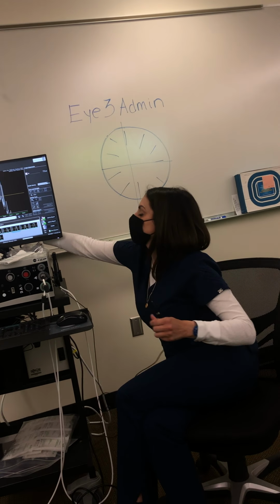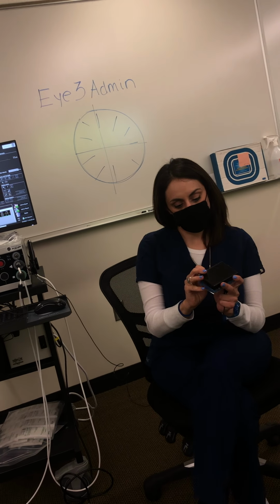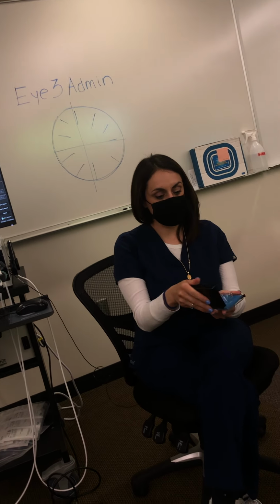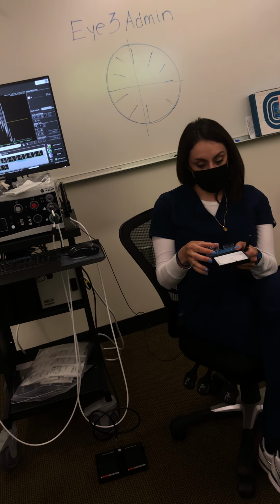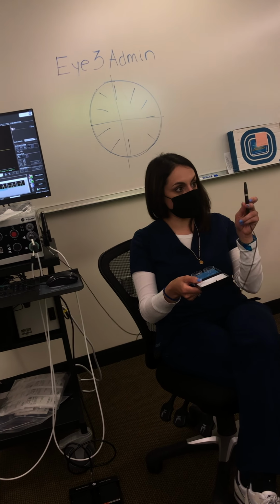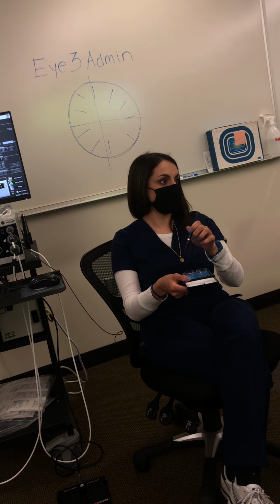You can do immersion with these cups as well. If you have a patient with really bad nystagmus, a really eccentric gaze, or a tarsorrhaphy, you can use these. Because this is a little bit further away on top of the water, they will be able to see the red light a little easier.